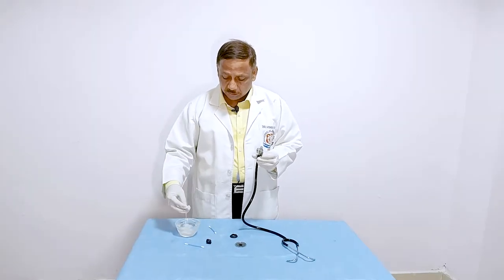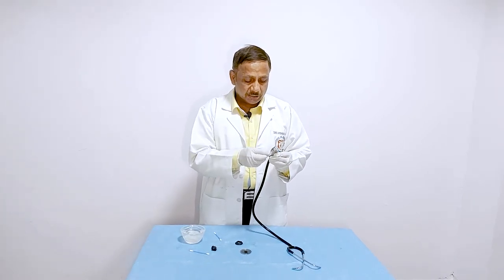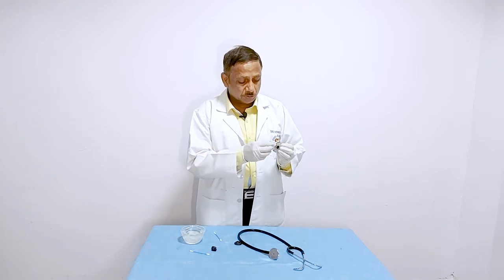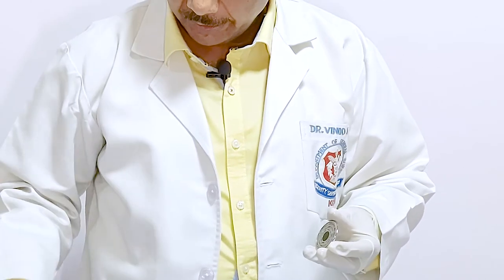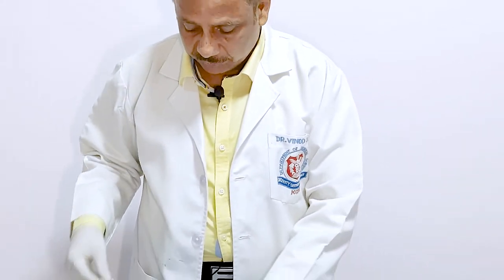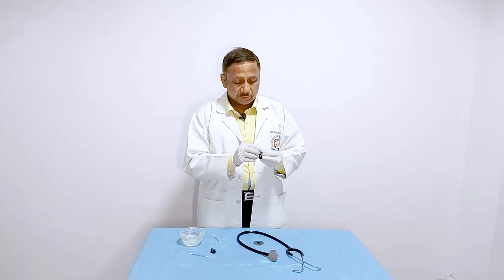Then you clean the middle portion. After you have done it, you take care of the diaphragm — it is also cleaned in the same circumferential manner, outer and inner side — as well as the ring of bell. The ring of bell is cleaned in a similar manner.